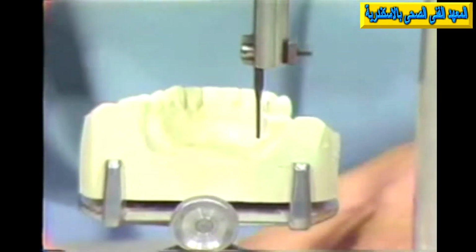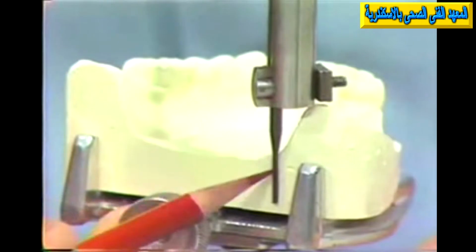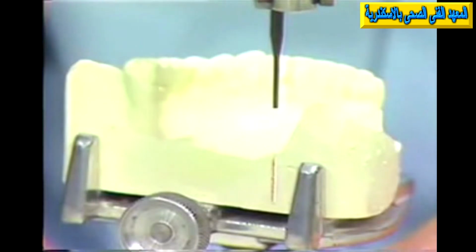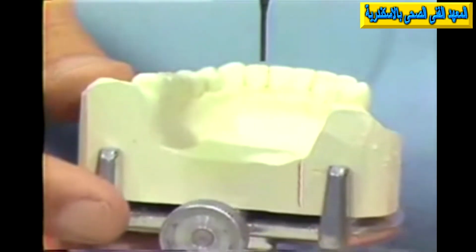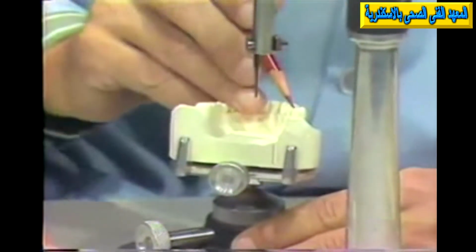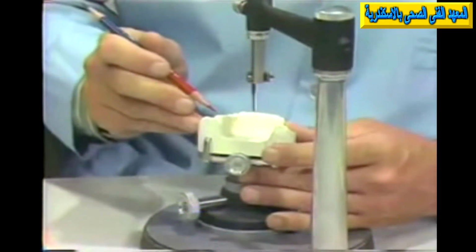Now, after our final choice of path of insertion and removal, we would finalize the choice by marking the cast, scratching a line, and I'll indicate it here with a red pencil instead of with a scratch mark, finalizing this so that we could return this cast to this same position if we chose to at any time in the future. And we can now move to a phase of treatment involving more of a mouth preparation sequence, that is, knowing now what our problems are, knowing where we wish to utilize areas of retention, where we have interferences, what might we want to do about this.